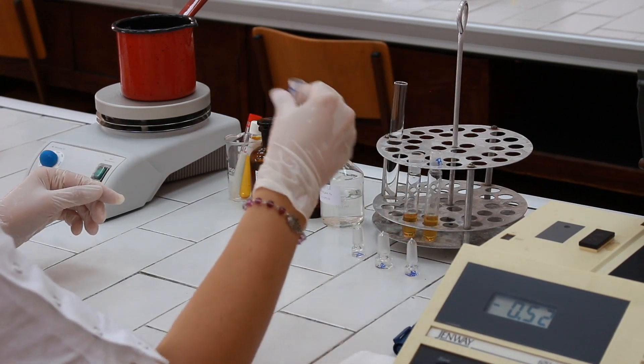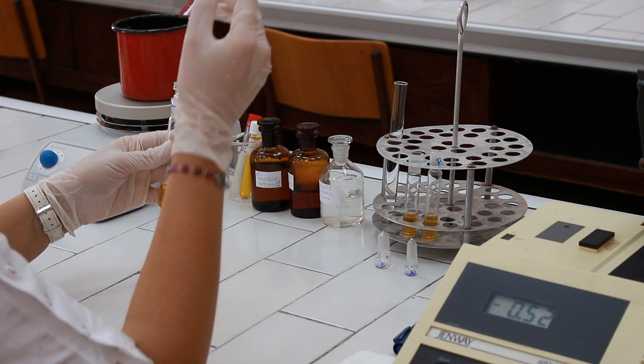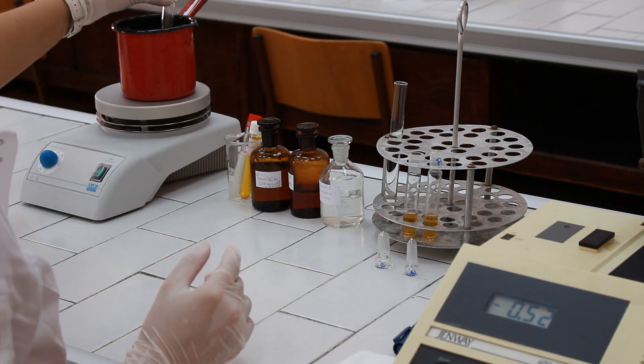Mix the test tubes gently, put the stopper and place them in boiling water bath for 10 minutes.